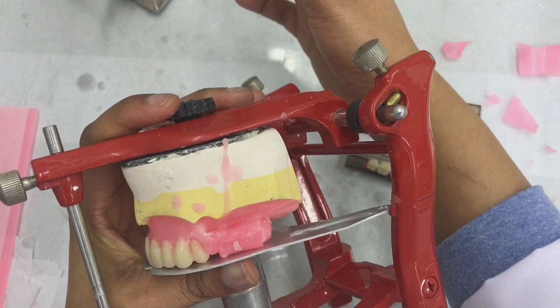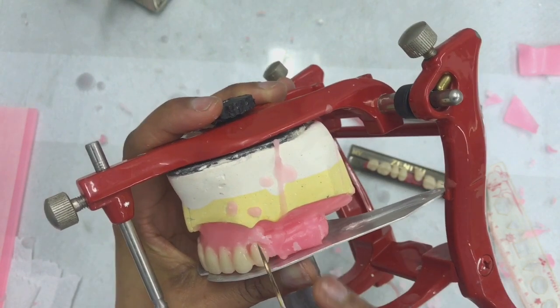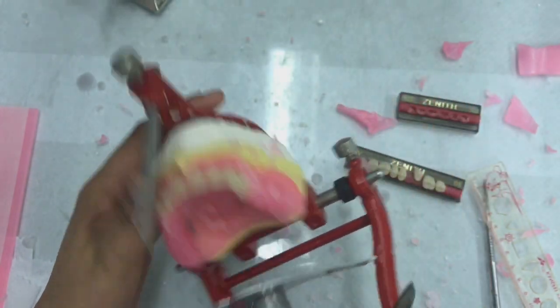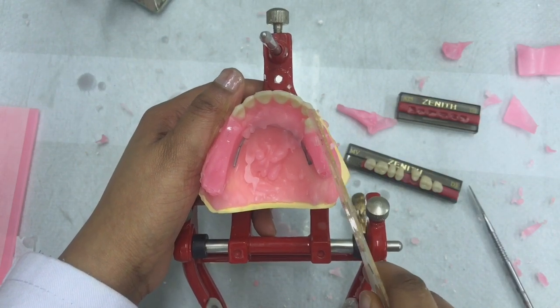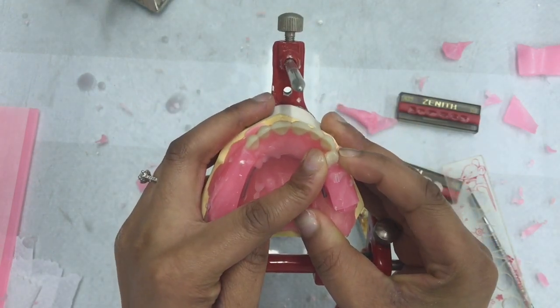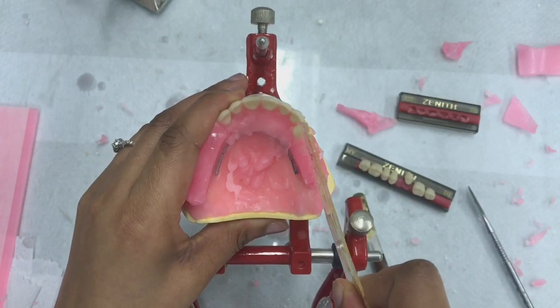Another thing that you need to be mindful of is that when you are viewing your premolar from the buccal view, the premolar must not be slanted, but its long axis must be vertical. Since I've just tweaked the tooth a bit, I'm going to double check if my position is still in the correct way. Okay, that has slightly moved, so I'm going to have to push my tooth a little bit in. Okay, that seems fine.